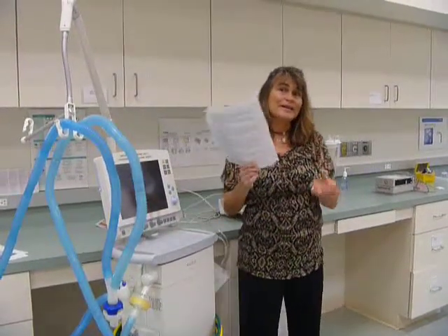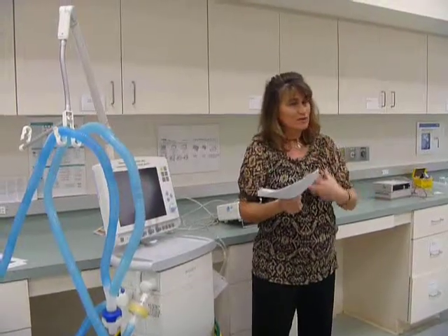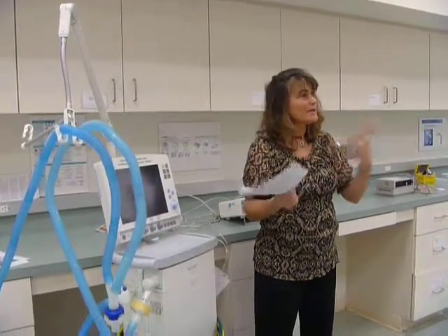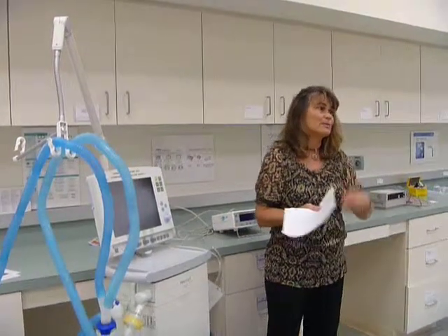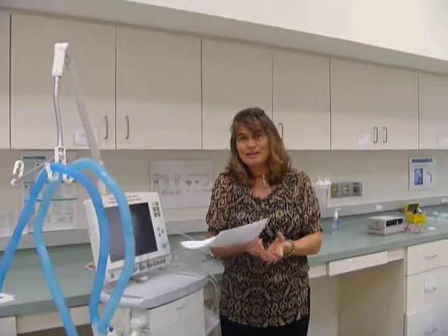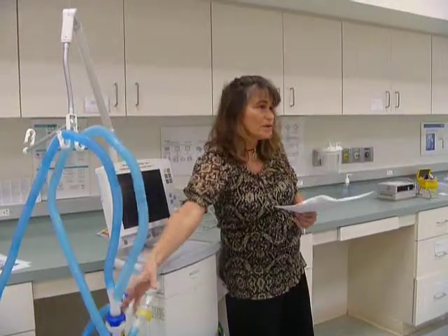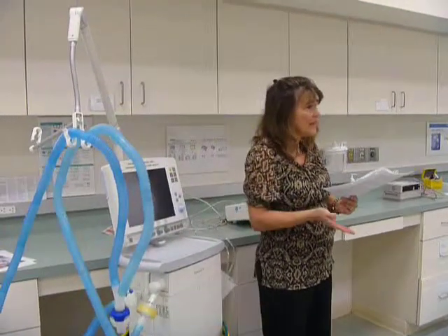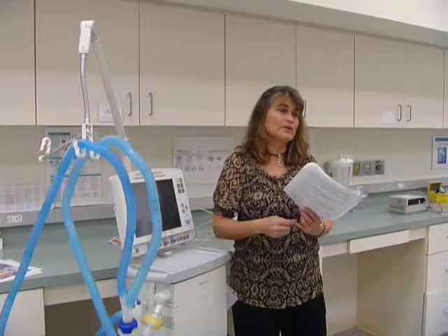Now they realize that the reason that patients are developing pneumonia is that their secretions are so thick because they're not being humidified adequately, and that's what's causing pneumonia also. So we've got the oropharyngeal secretions, we've got retained secretions that are really thick because we haven't humidified them correctly, and now the patients are getting pneumonia. So some hospitals, you'll see them use the heat and moisture exchanger on the patient maybe for the first 2 to 3 days, and then after that, it's the policy to switch over to a heated humidifier.